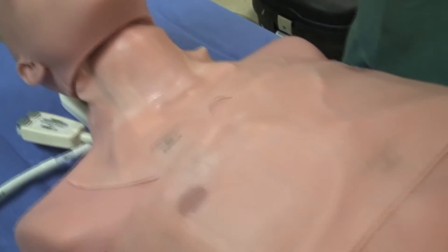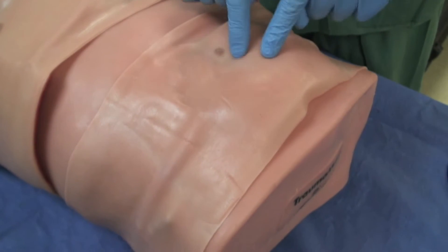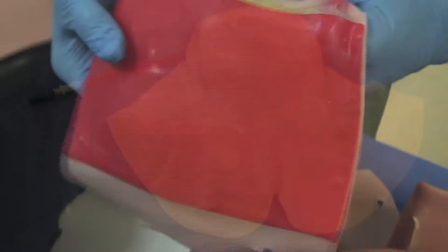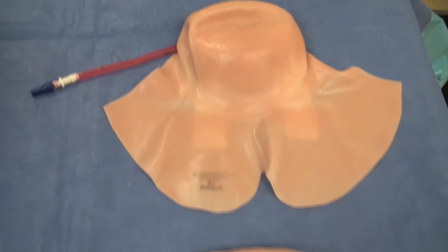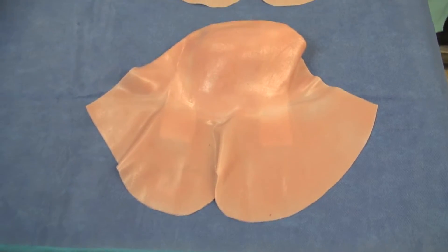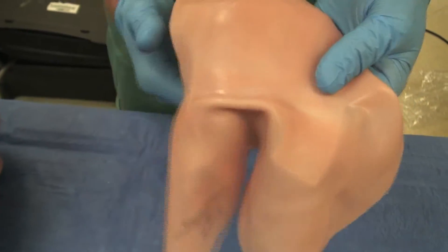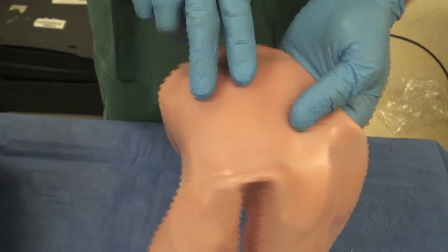On the standard TraumaMan shown here, a diagnostic peritoneal lavage skin is now available in both interchangeable regular and obese tissue sets. This also extends to the neck skins, which similarly can be bleeding or non-bleeding, dependent on their specific learning outcomes. Lastly of note is that Simulab skins provide multiple first-cut opportunities by simply picking up and moving the skin after the first learner has performed the learning activity.